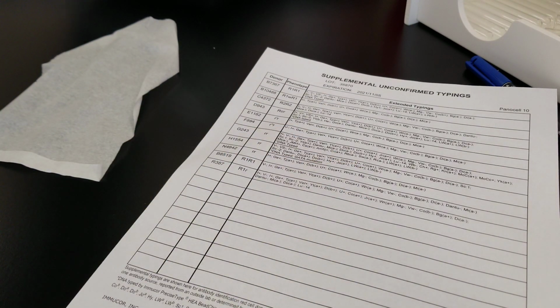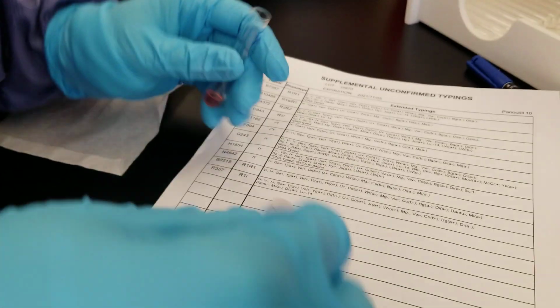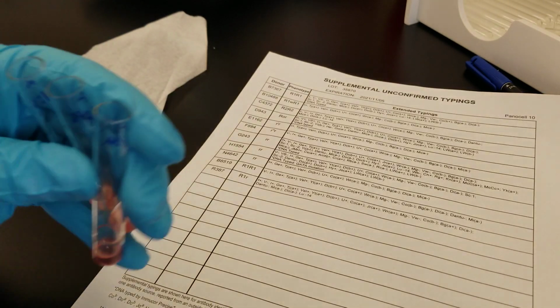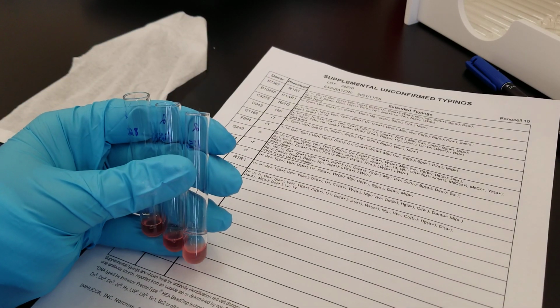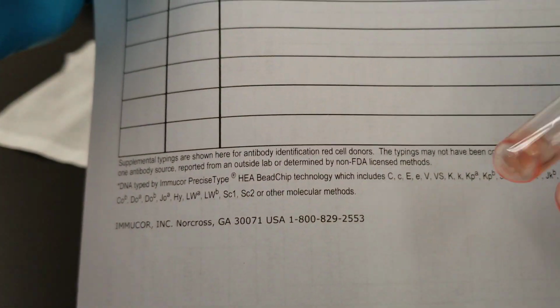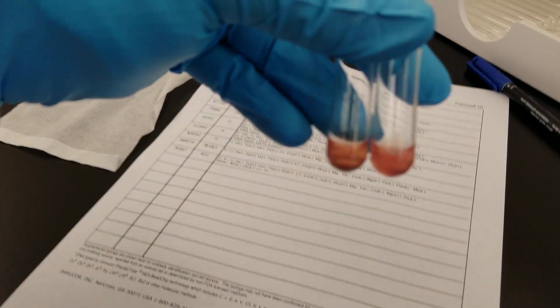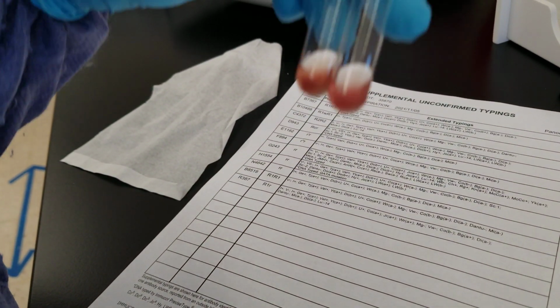I'm gonna look back. Oh, they're so weak. This one's weak too. All right, so I'm gonna take that back. Well, no, I'm gonna call that negative. All right, so those last three were negative, and then we've got the first two of the first visit. I'd call each of those a 1. You can't see it very well, but they look like ones.